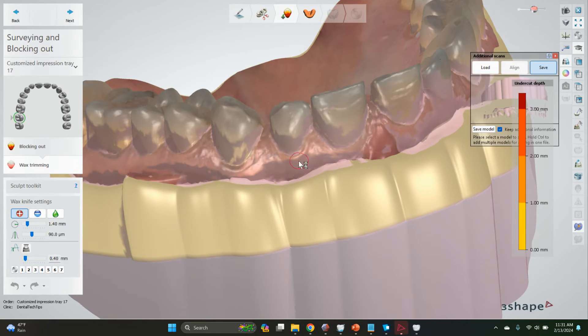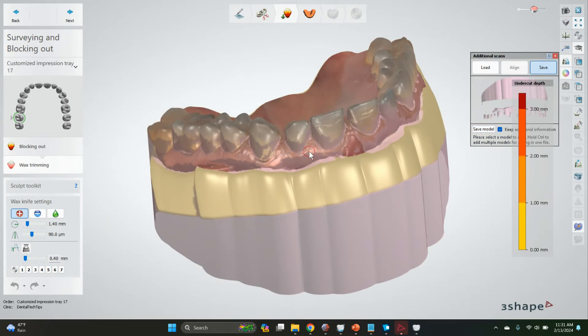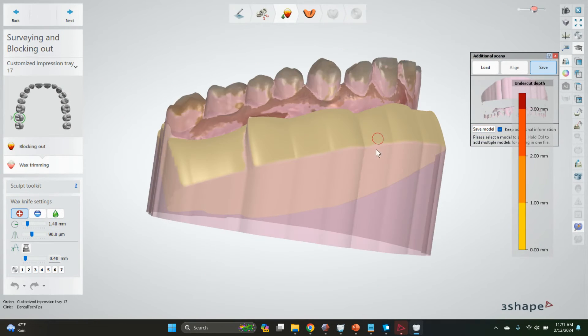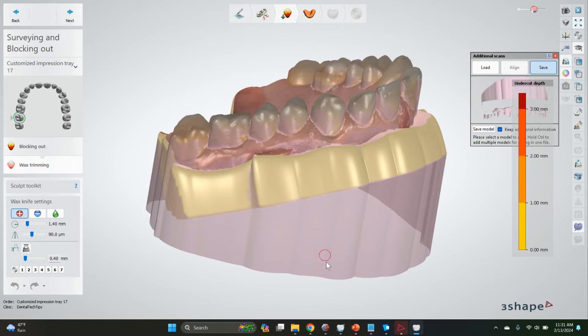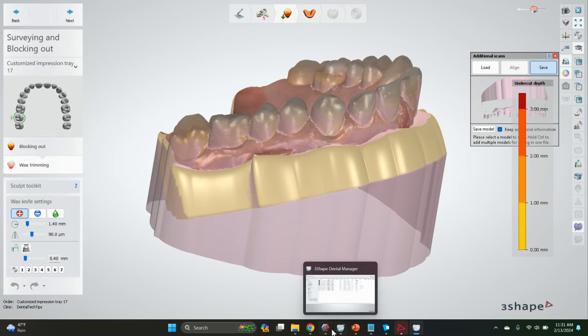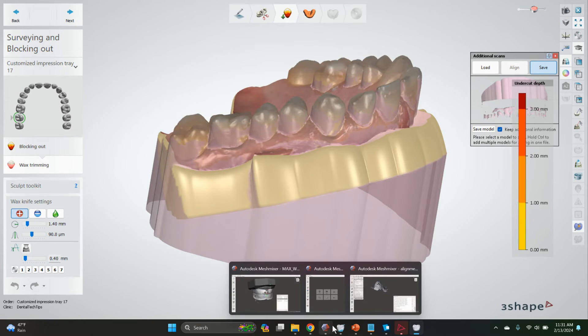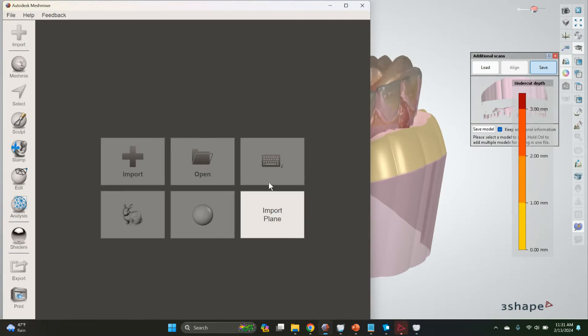Save. It's going to save all this entire purple thing here, but if you want to make this a very easy printed model, I'm just going to wait for Mesh Mixer to open up here and go import.